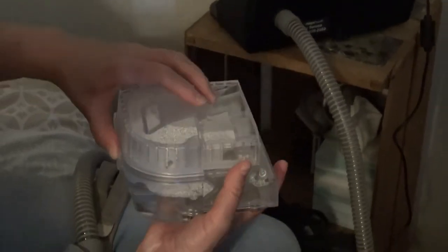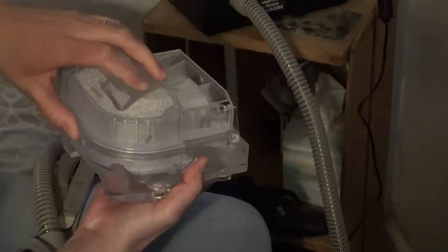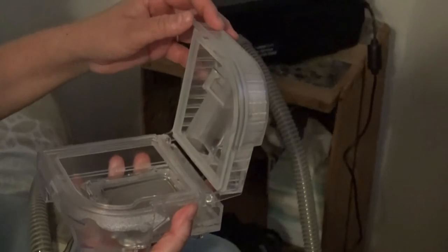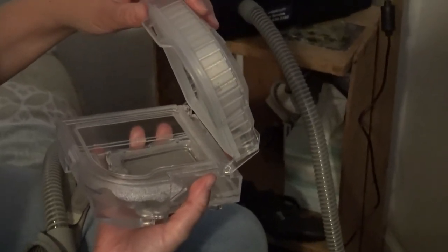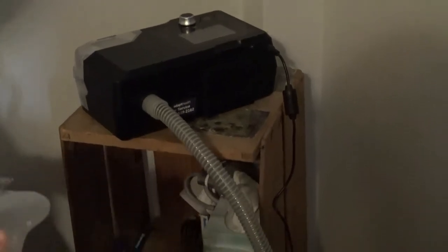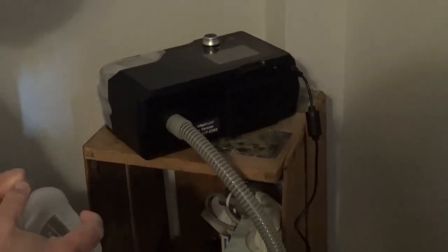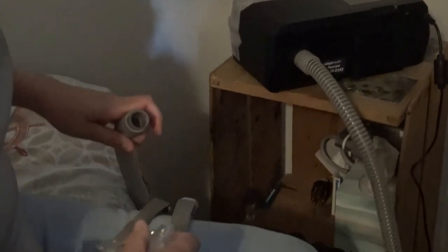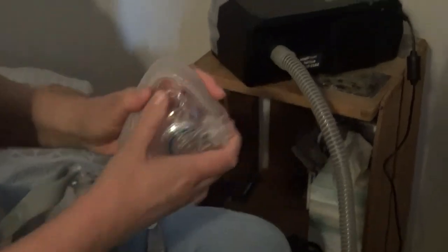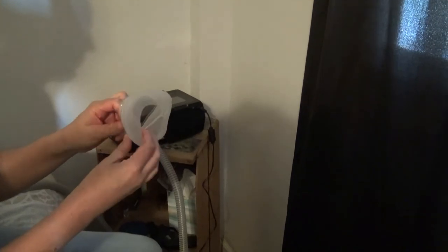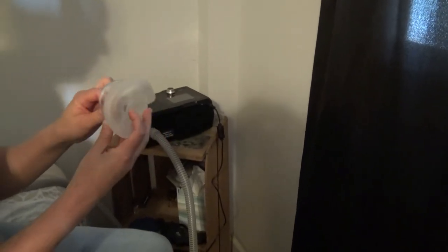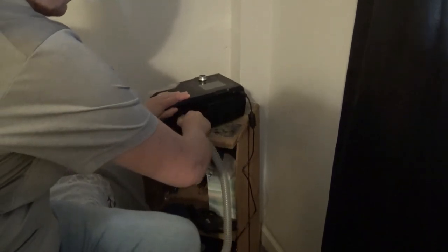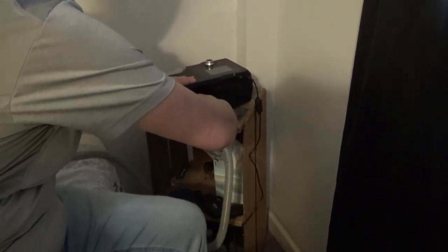Like he was saying, it's really easy to take out the bin or water tray, so you would just clean this daily with some mild soap. I would clean this when I would clean the tube and everything like that. It does say to clean it daily, so you can put some soapy water in your sink and just let it soak for five minutes. Your mask you can take apart and just wash this piece. I would also just put that in your sink full of soapy water.